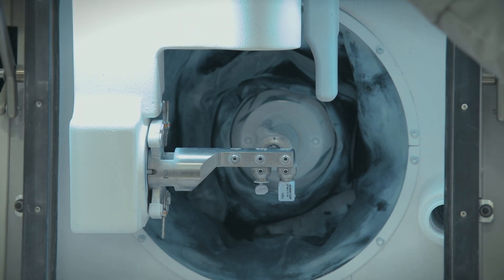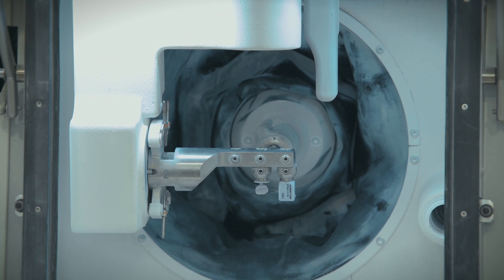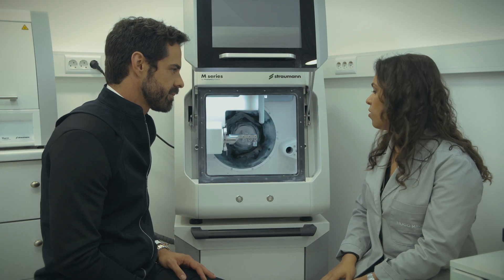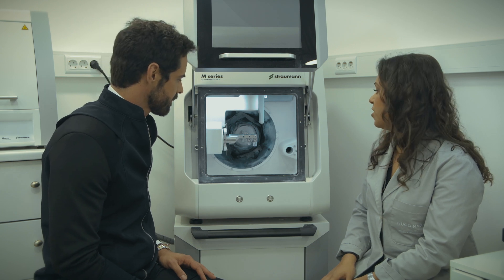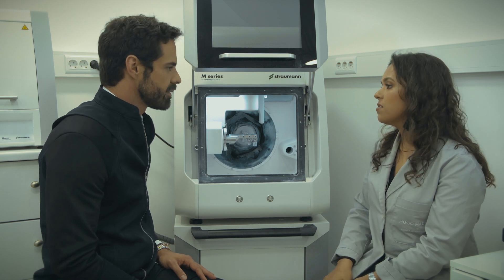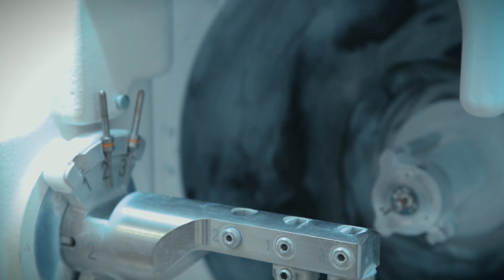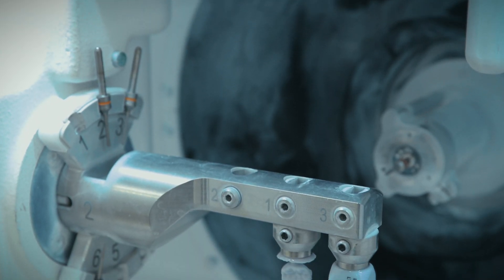Jessica, I can see that you have here a block. What can you have from that block? Crowns, bridges, onlays, overlays. Yeah, you can have almost every kind of work from this milling machine.